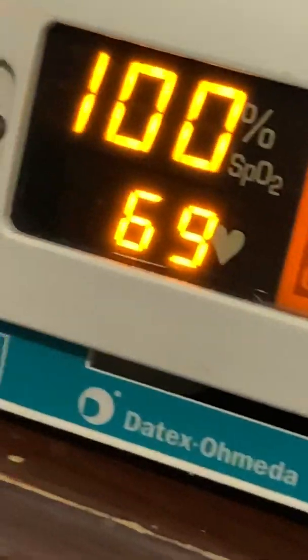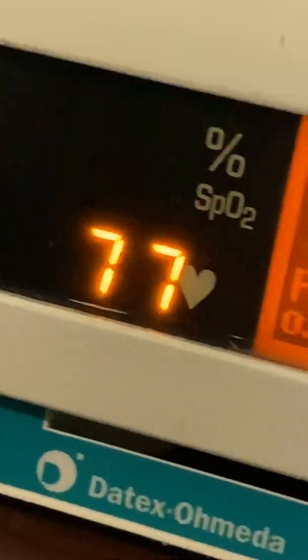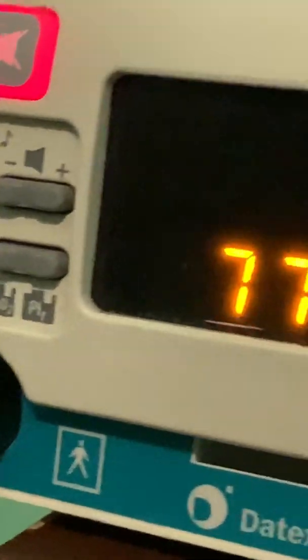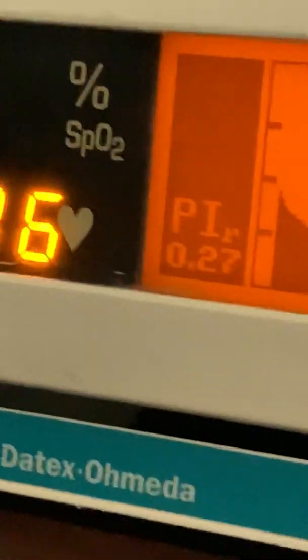You sense it's silenced. I guess the silence period already expired, let me try that again. So there's an active alarm. I still can't find the bell icon, but somewhere around there was a bell icon that displayed when the alarm was silenced. But if you notice, the red alarm LED is steady — it's not blinking red. It's steady. That means the alarm is silenced.